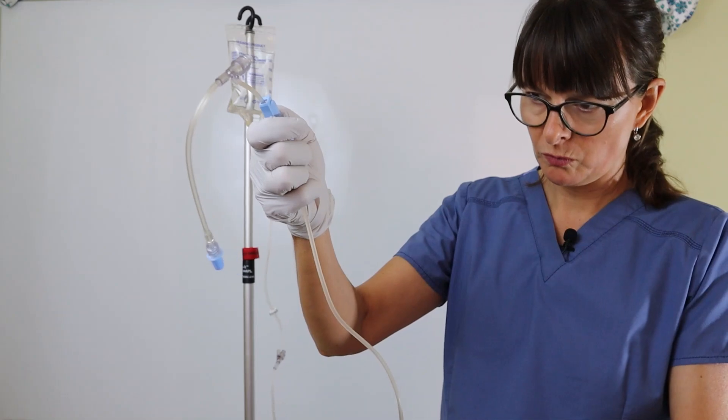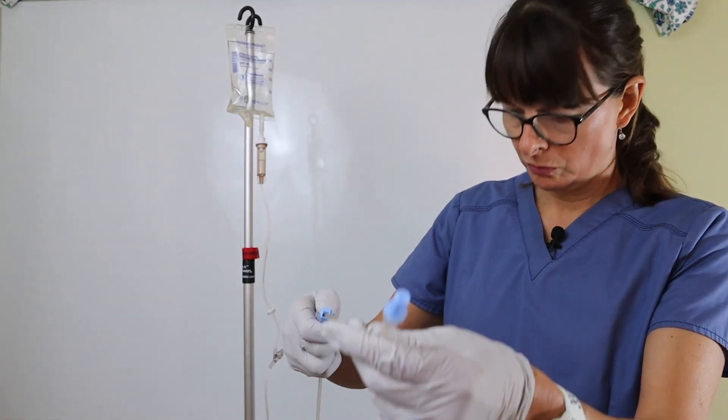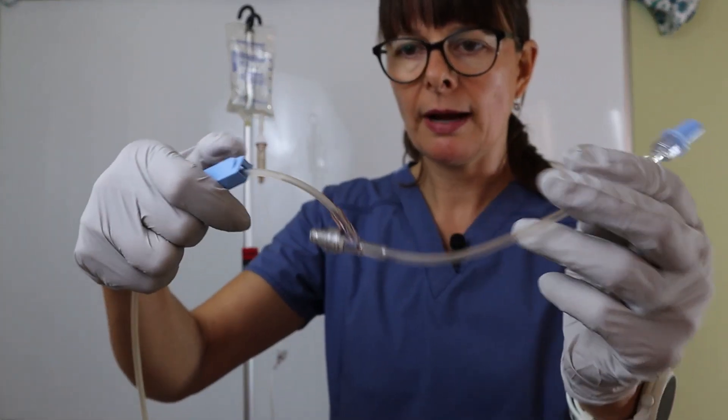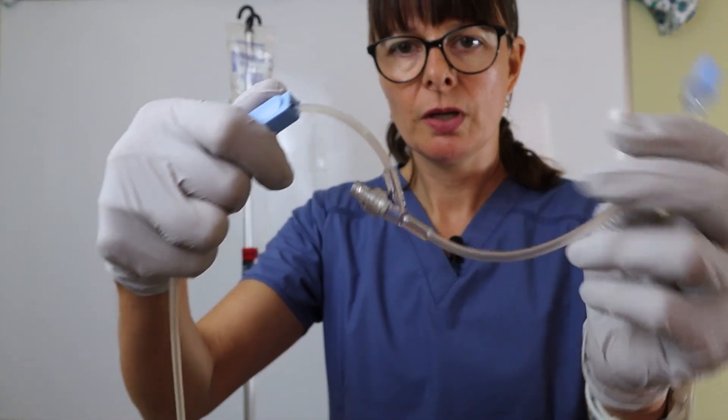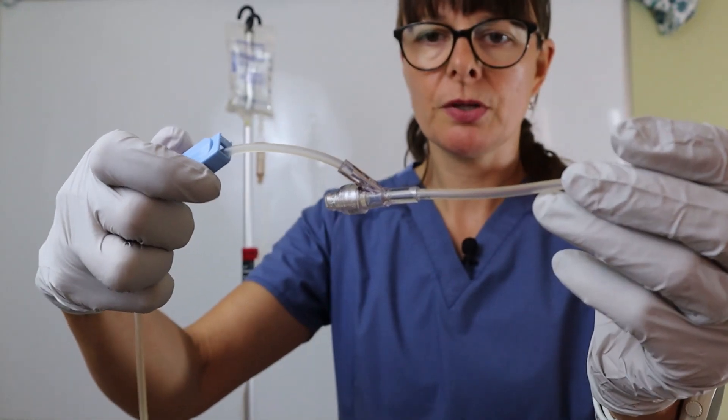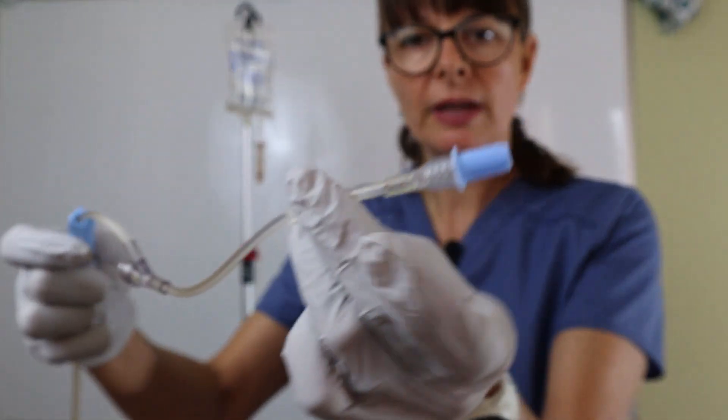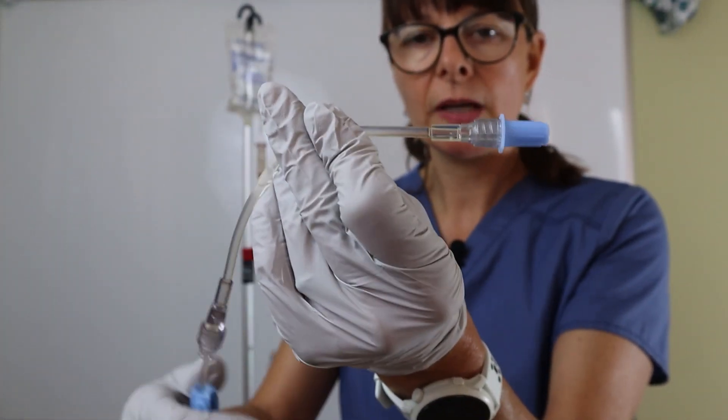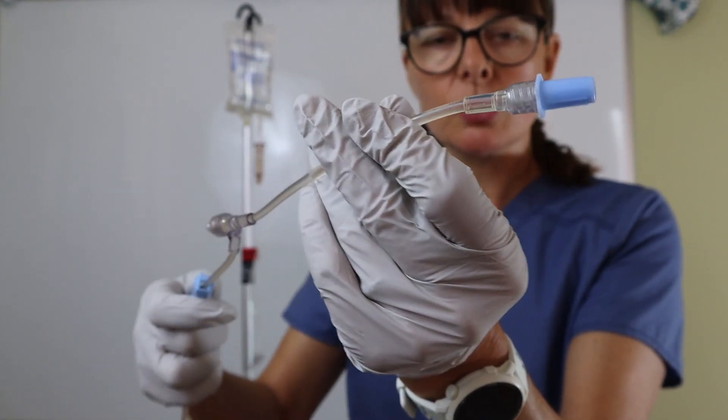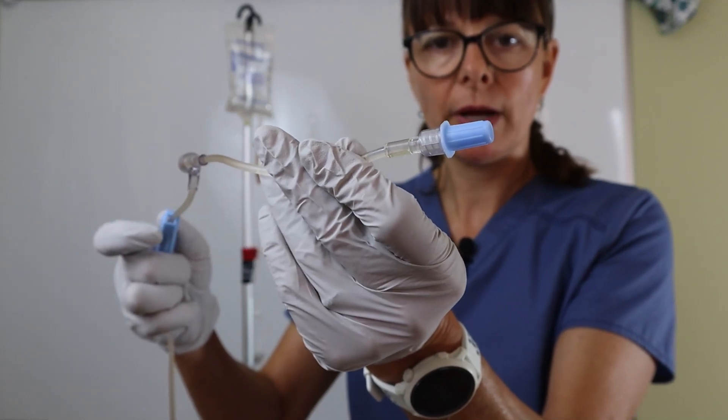I can see it coming here. Here's the fluid level as it comes through the last port. When it comes to the very end, the fluid level is right here. I'm going to slow it down until I see just one drop coming out of the port. That way, I know it's primed completely.